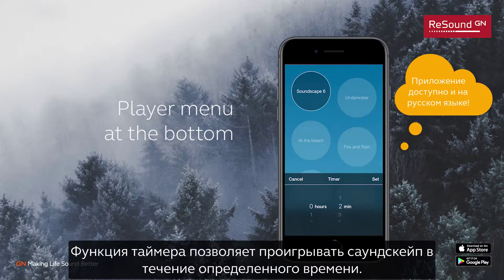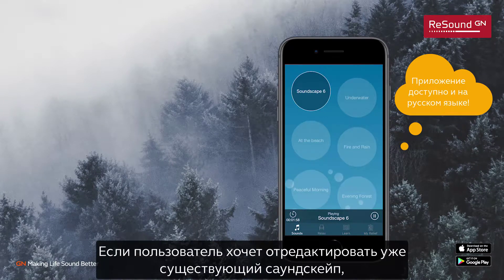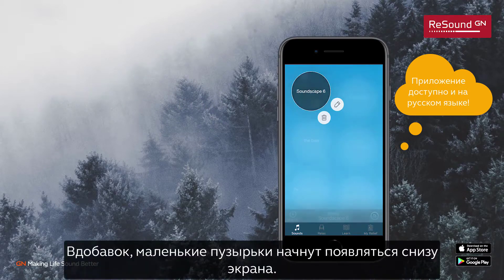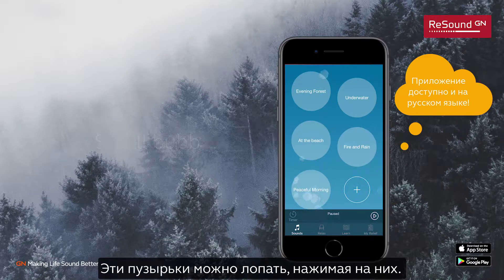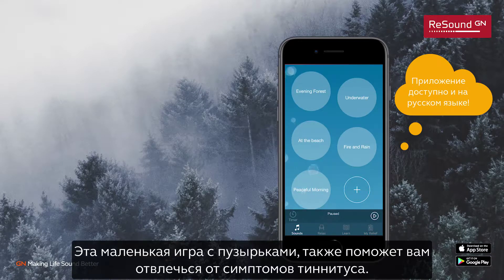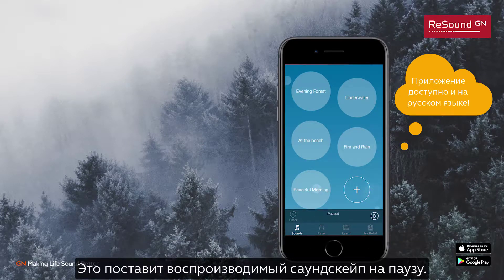Further control options are in the player menu at the bottom. Using the timer function, a soundscape can be played for a specific amount of time. If the user wants to edit an existing soundscape, simply long press the relevant bubble and an edit and delete option will appear. In addition, small bubbles will start to flow from the bottom of the screen. These bubbles can be popped by tapping them, adding additional distraction from the tinnitus. Be mindful not to accidentally hit a soundscape bubble, as this will cause the soundscape to pause.